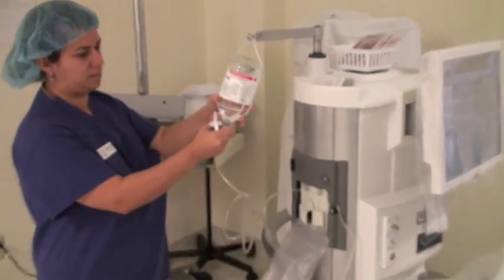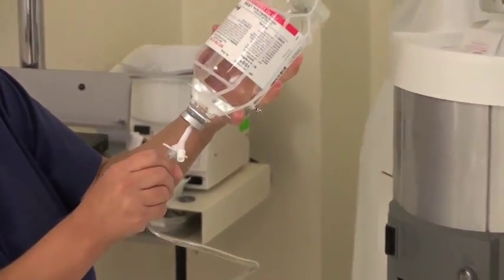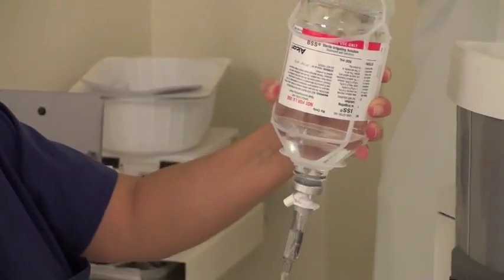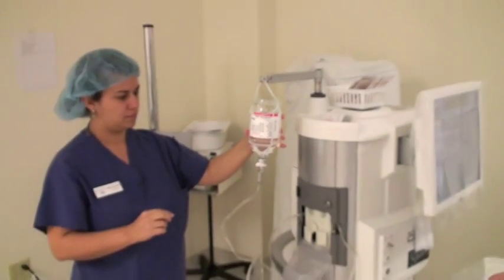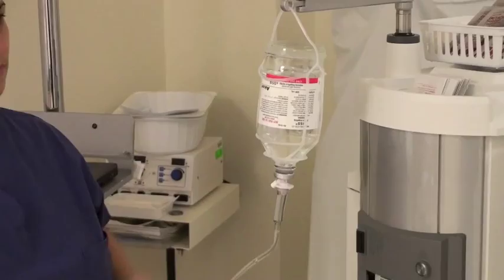You're going to take off the little plastic cap off the BSS bottle and the cap off the end of the tip, and you're going to spike the bottle. Just crimp the tube as you spike the bottle — that will allow fewer air bubbles to get into the tube. Then you just squeeze the reservoir area so it will fill up with BSS, and that's all you do for that right now.